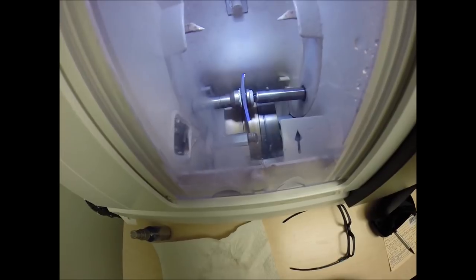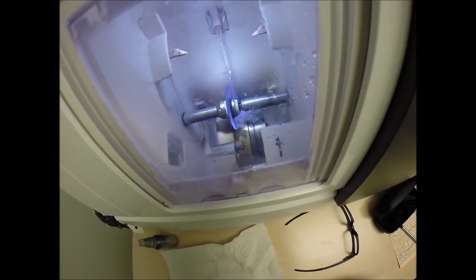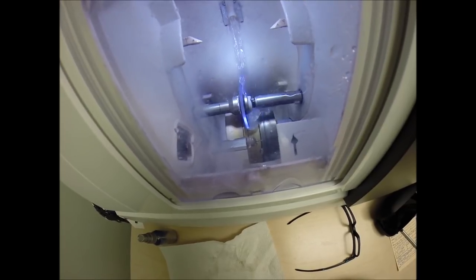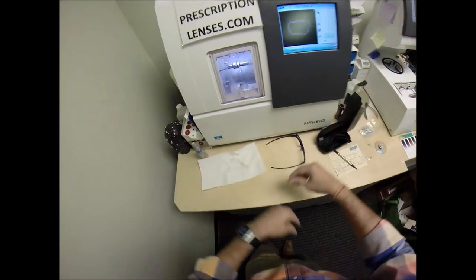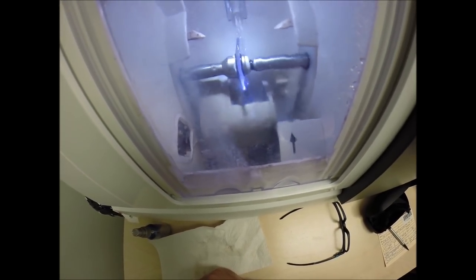It'll just slide right in. Don't you like it when that happens? I'm running my mouth, which means I'm stretching to make this thing last. But I do not apologize for making sure that every pair of lenses gets cut perfectly before I ship. That's the only thing perfect about me is my lab work.